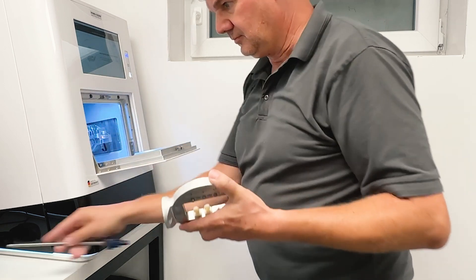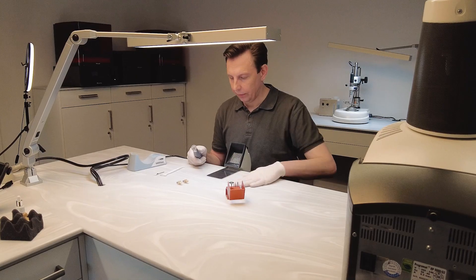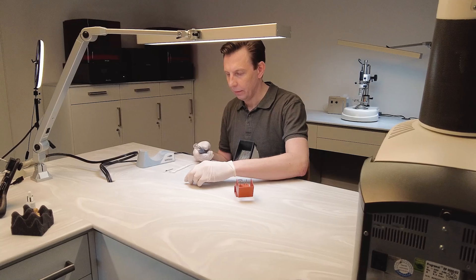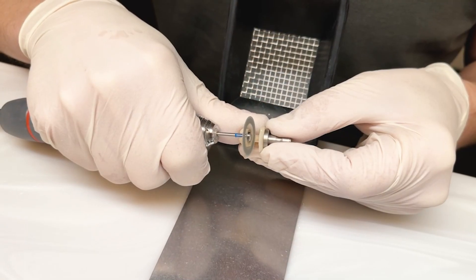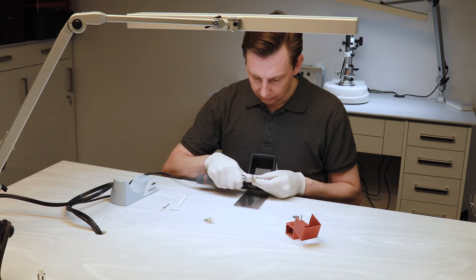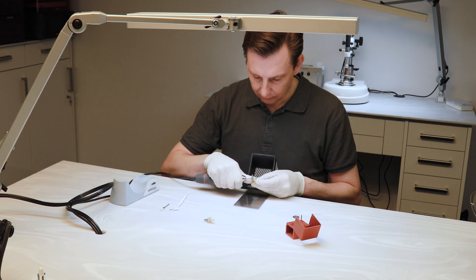After the milling process, the holder is removed from the machine. Our crowns are now fully milled and are separated from the retaining pin of the block. They are then finished by grinding.